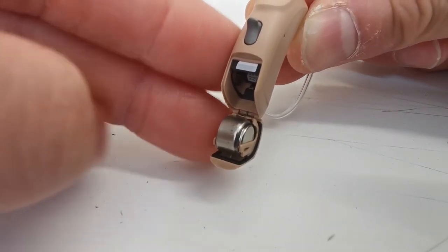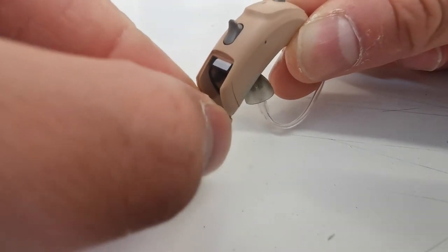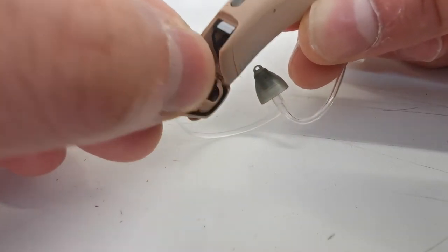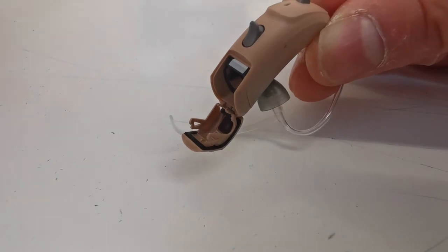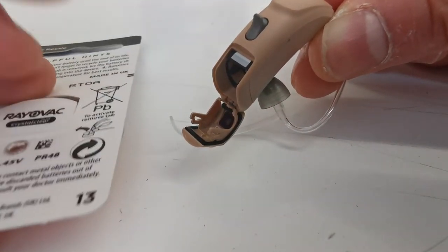To remove the battery you lift the battery out of the compartment. You then get a new battery.